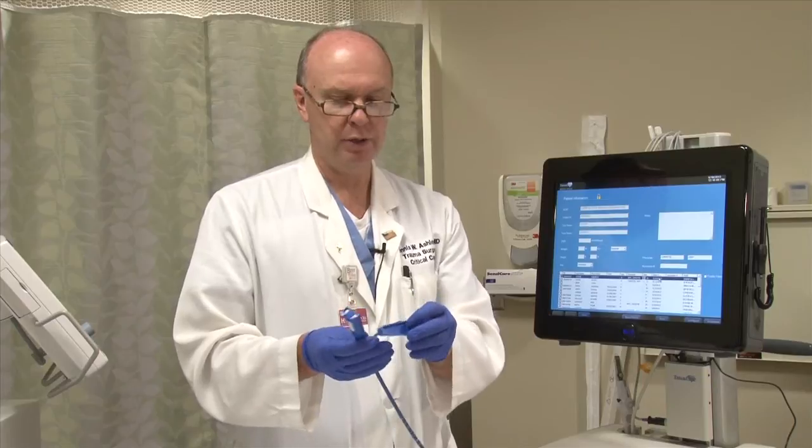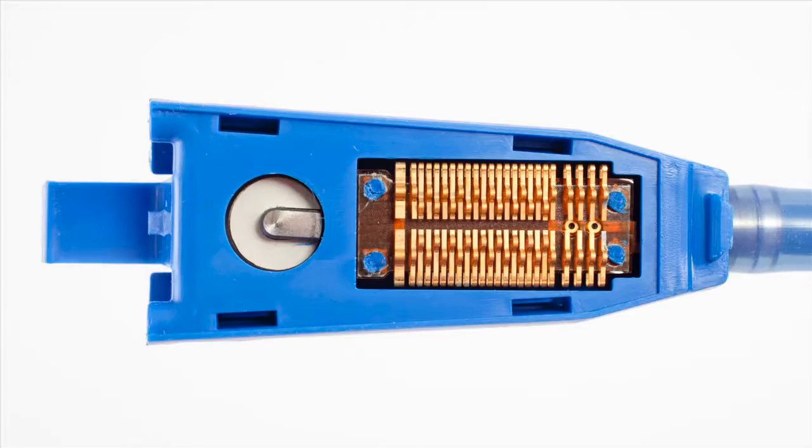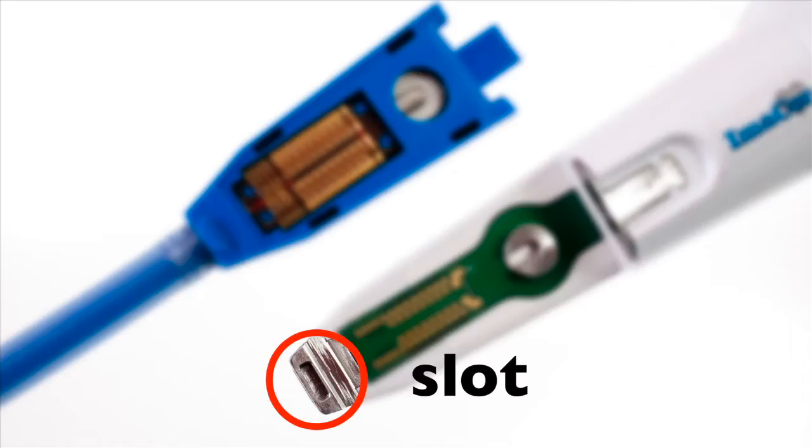Open the cartridge and look at the pins to make sure that they're not bent and that they will fit well into the handle. There's a groove or a notch in the handle that must be aligned with this notch in the cartridge.